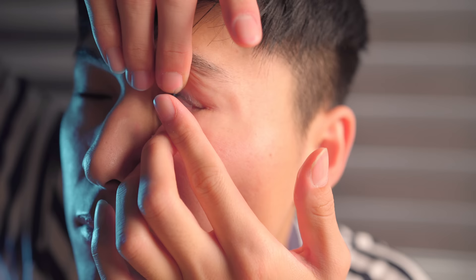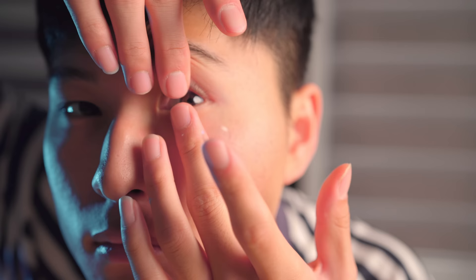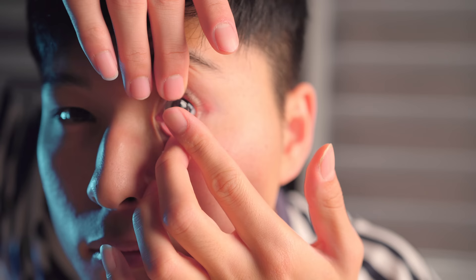When the lens approaches the eye, most people panic by either closing their eyes stronger than what they can keep open, looking away to avoid looking at the lens, or immediately jumping as soon as they feel the lens touching the eye. To be fair these are all instinctive movements so you can't fault yourself for doing them, but it's important to stay focused and calm during this process.